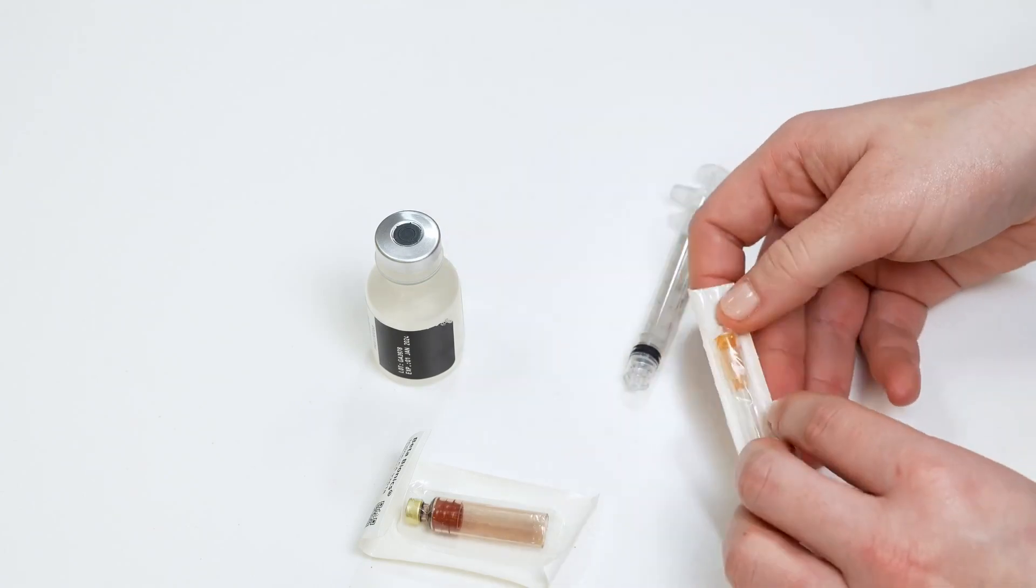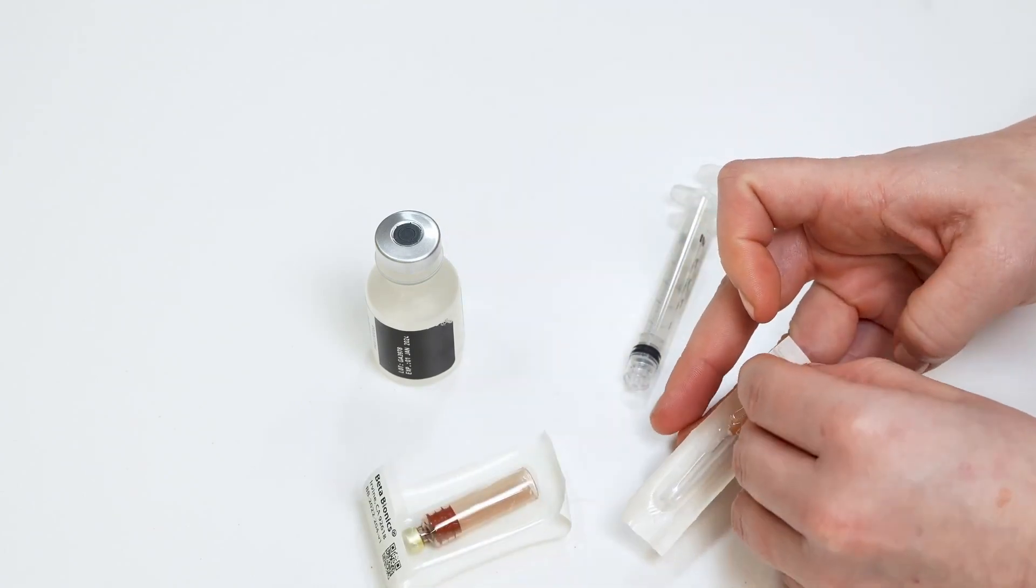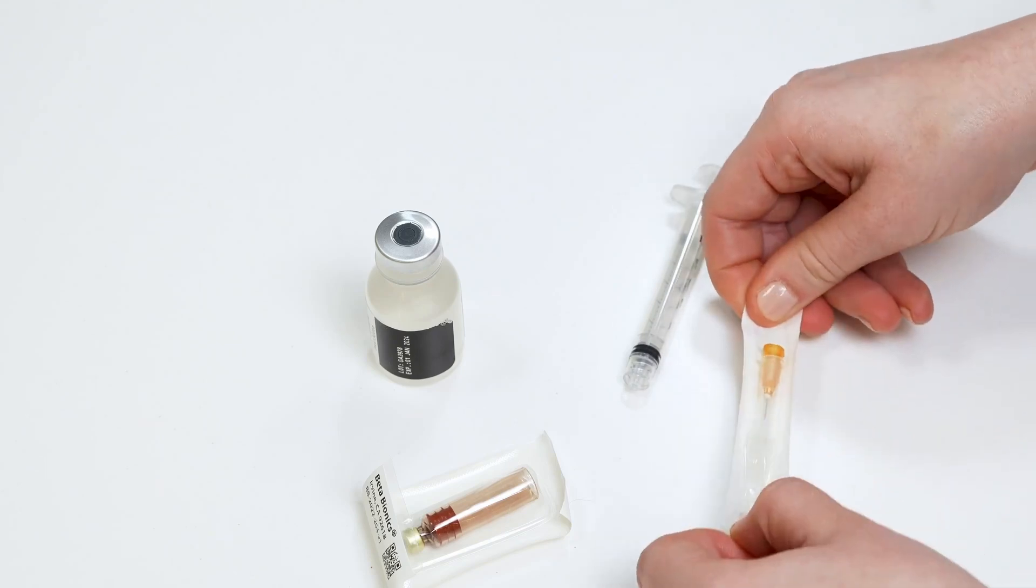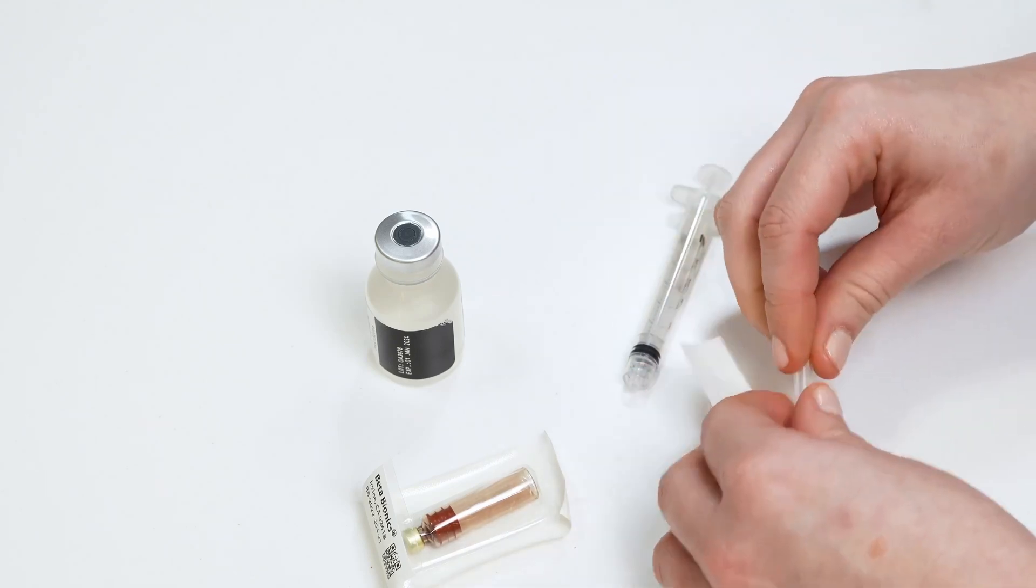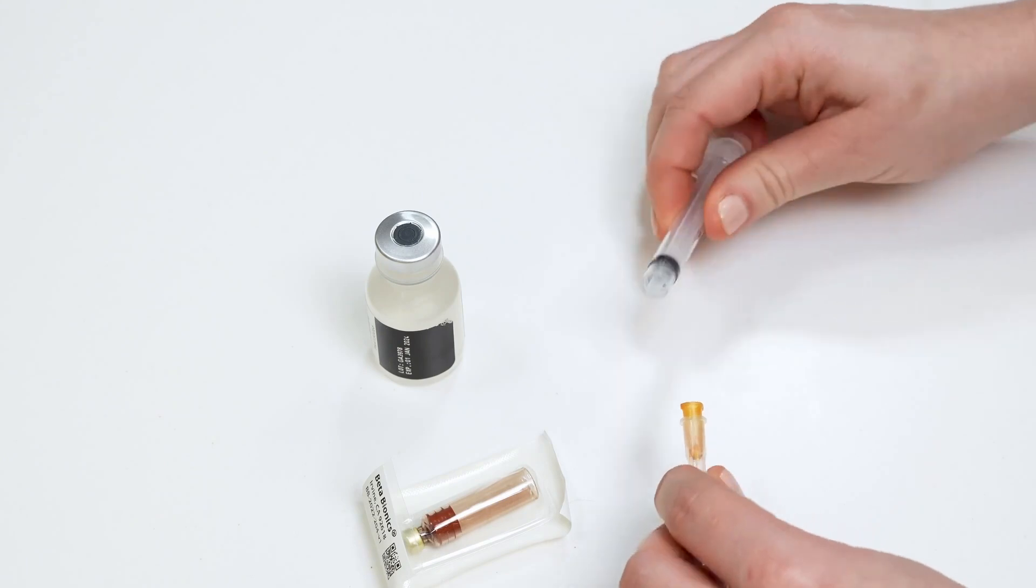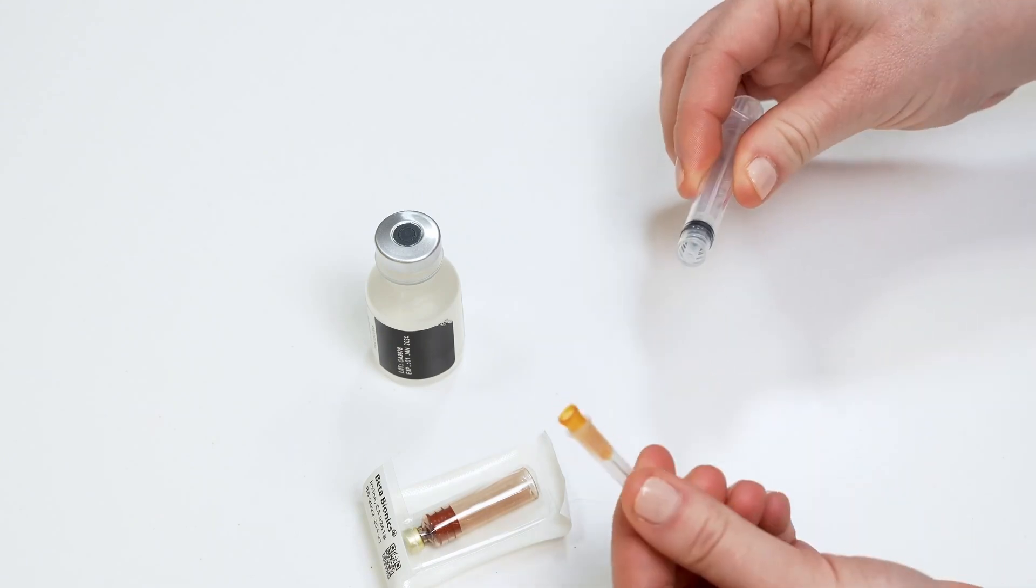Then, open the needle package and remove the needle from the packaging. Attach the syringe to the needle by twisting one onto the other.